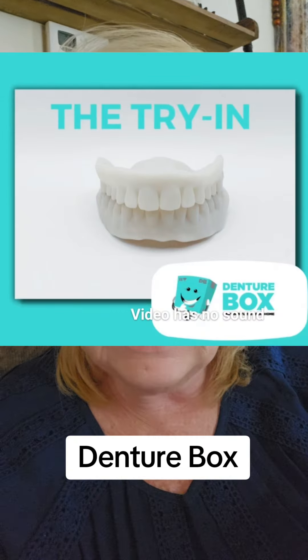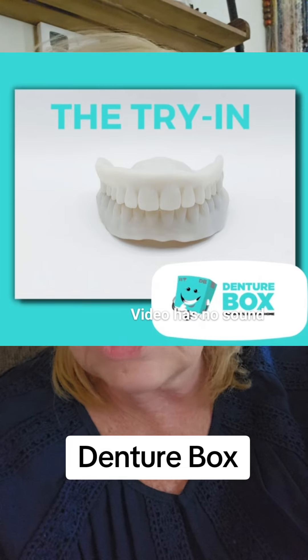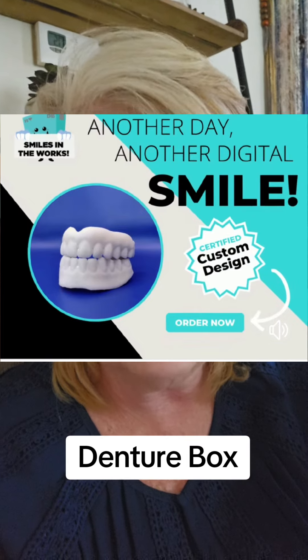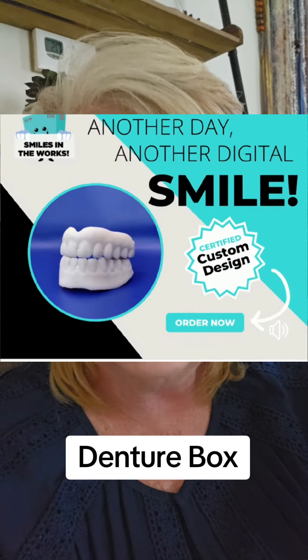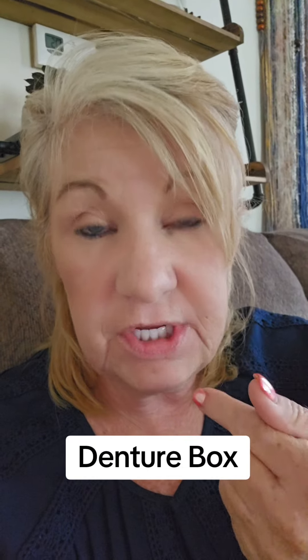You can give your input and they will send you back a try-in denture. The try-in denture is like a white denture that you can wear — similar to the wax try-in you'd get at a dentist. But you wear this try-in denture for a week: you can function in it, eat with it, live your life with it. Nobody will really know it's a try-in, and it's actually the shade of their tooth color so you can see if you like it.